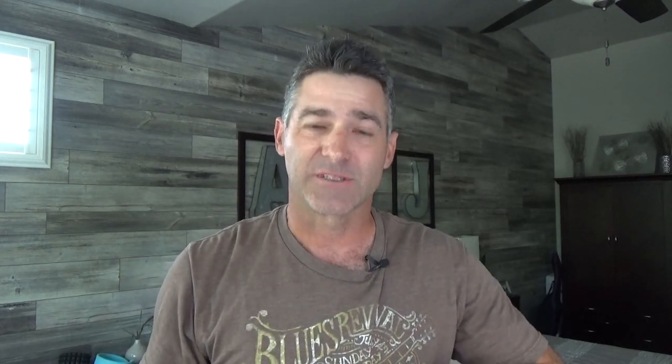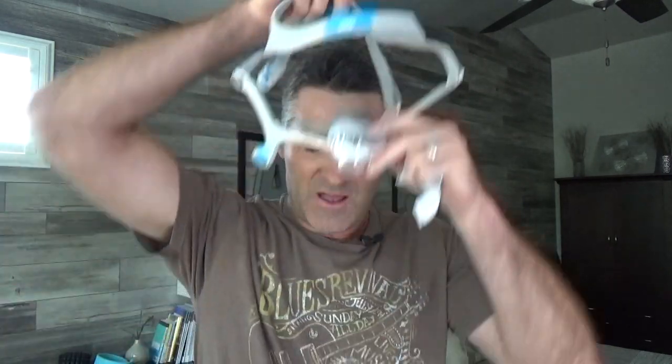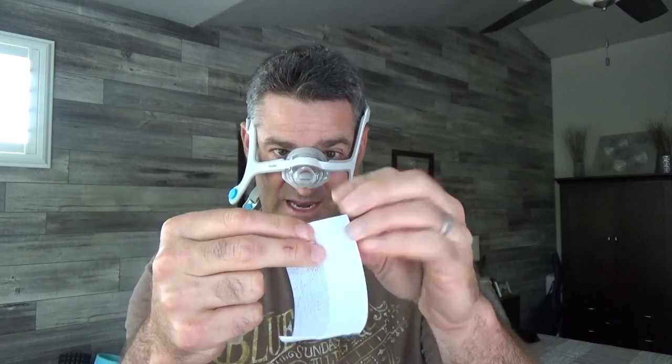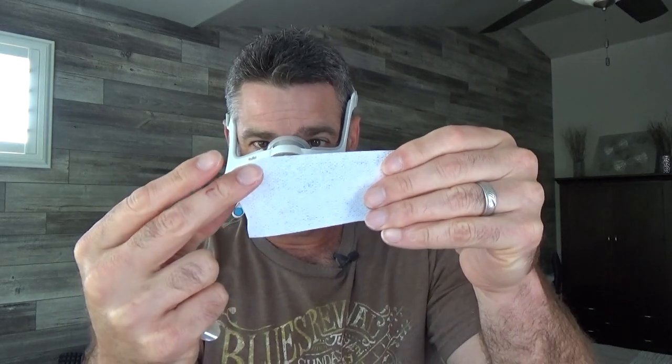When we put this on, we've got to purse our lips together really tight, as tight as you can — make it almost uncomfortable. It's just going to last a couple seconds. What I like to do at this point is be laying in bed. I take my mask — in this case I have an N20 with an AirTouch cushion, slightly up. I've been laying in bed, heart rate coming down, then I dog ear one corner. The reason I'm laying down and calm is because when you put tape on, sometimes you feel like you have to take a deep breath and it's kind of uncomfortable. So I have this dog ear, purse my lips together very tight. Got to push really hard to get that to pop.